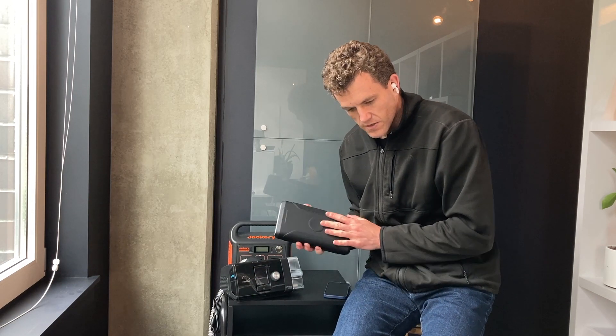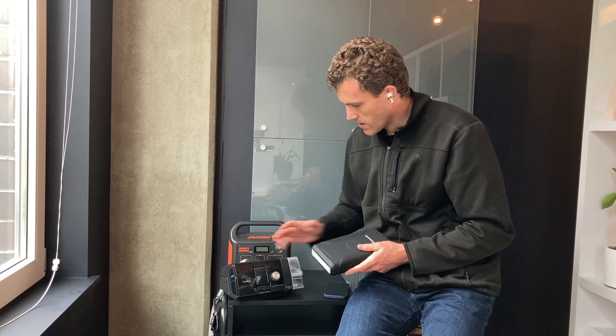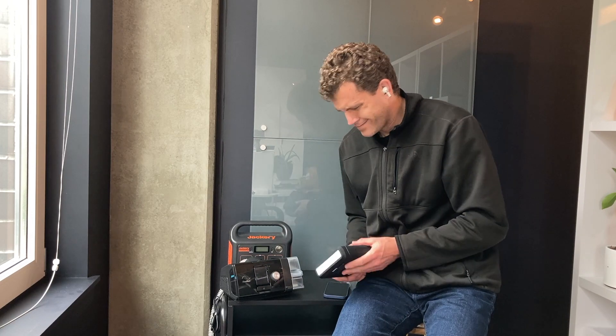So yes, this is the Renogy. It wasn't the cheapest thing, but like I said — big capacity, really nice solid feel to it. It'd be great for camping with your CPAP, or traveling. It'd be great.